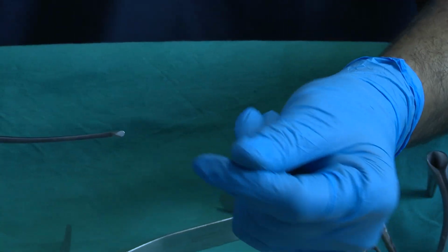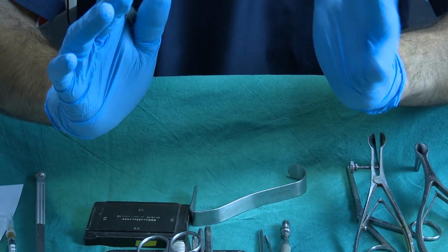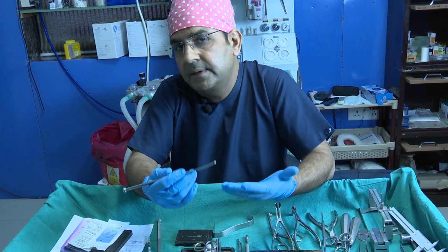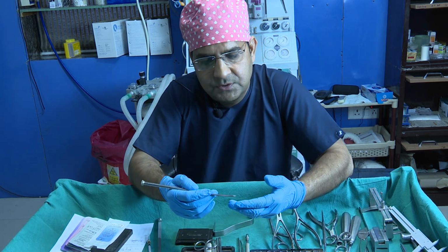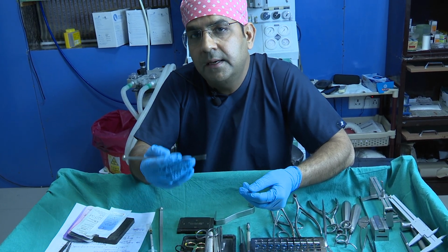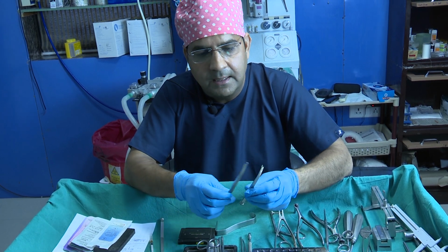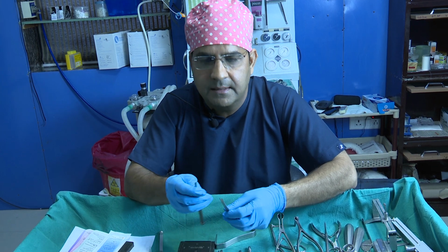So the advantage of this guarding end is that throughout the osteotomy you can feel where you are working. Sometimes it also helps when the patient has thick bone, because then the osteotome can be displaced. If you put pressure with a thumb outside on the lateral nasal wall, it prevents the slippage of your osteotome. You use either the right or the left side according to this guarding end. So the guarding end is outside and the cutting end is inside.